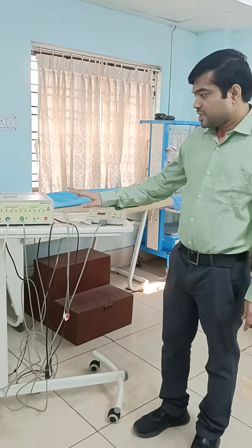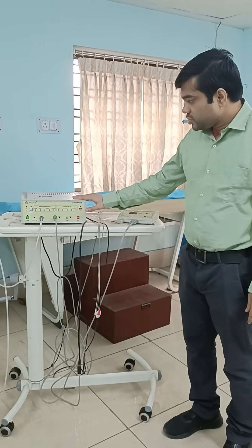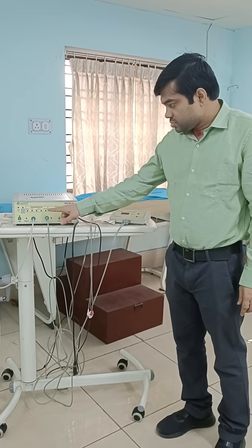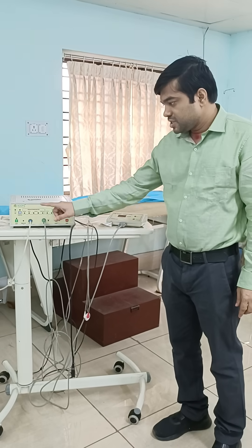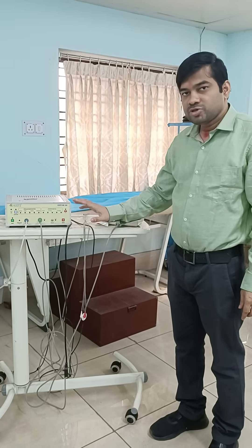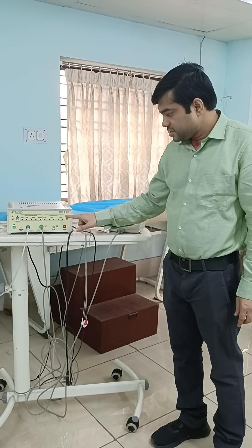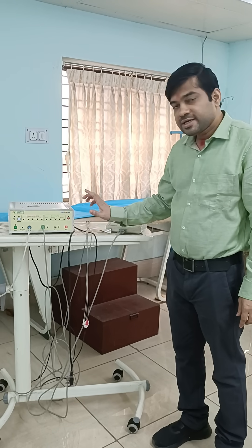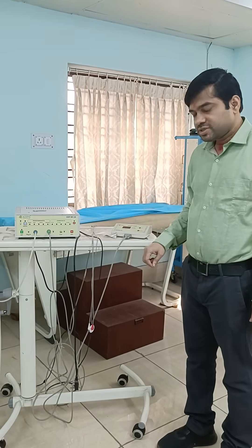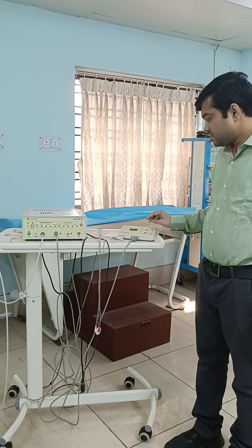This is the cardiac autonomic neuropathy machine and we can find out the sympathetic and parasympathetic function of the heart. Heart rate variability we can also find out from this machine, and this is the panel here — it will show the timing and the blood pressure.